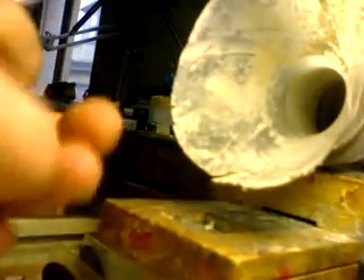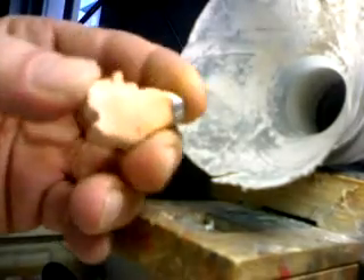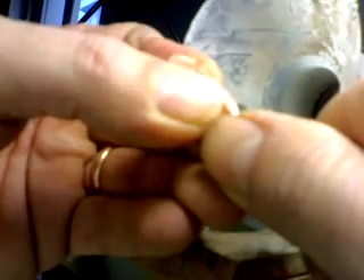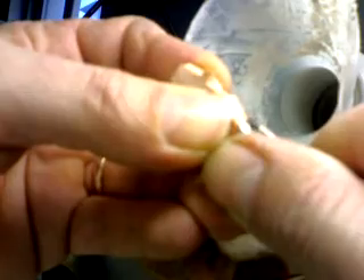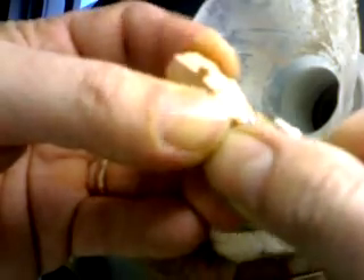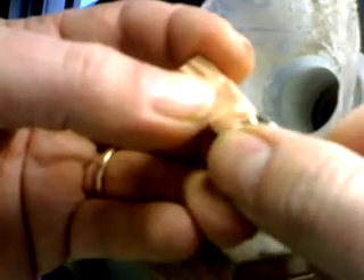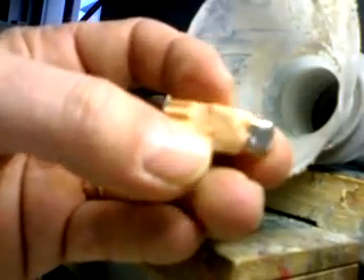I put my die on — my coping — so I can see everything magnified. And always going in one direction, as you see, I clean my margin. I will be going all around the same way.